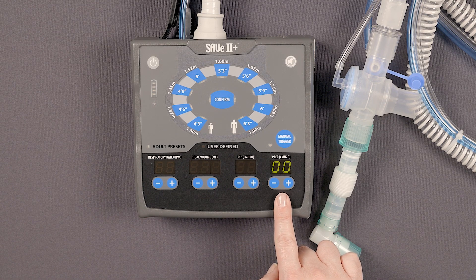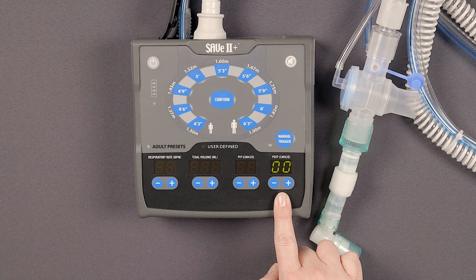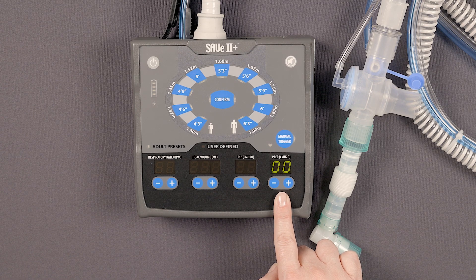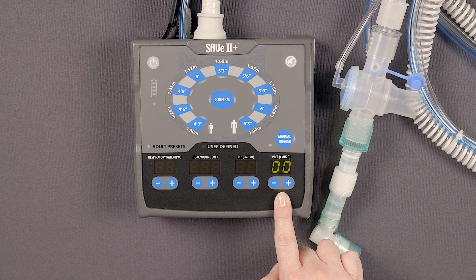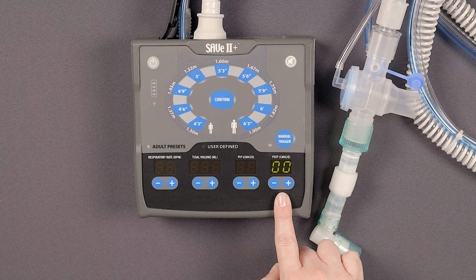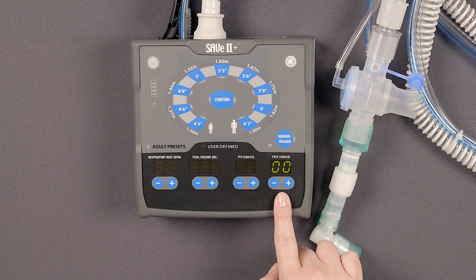These buttons are used to control the positive end-expiratory pressure, or PEEP, and display the set PEEP of each breath. After selecting the adult height preset and pressing the confirm button, the ventilator will display here the measured PEEP maintained in the breathing circuit at the end of each exhalation.